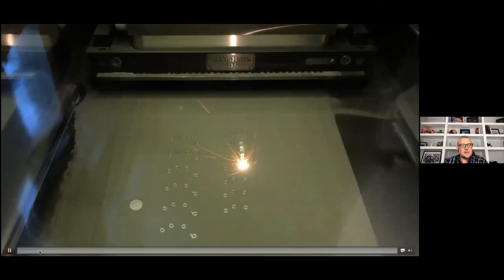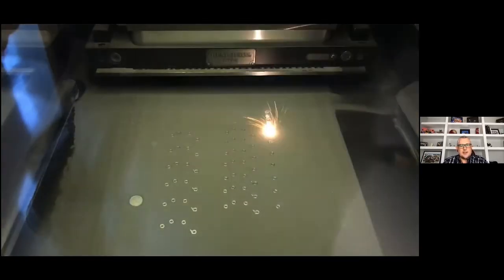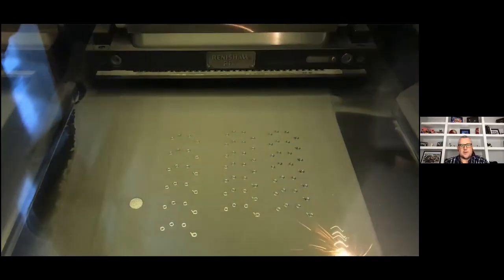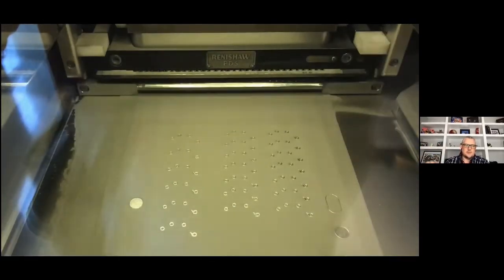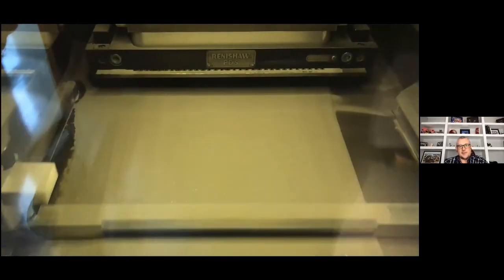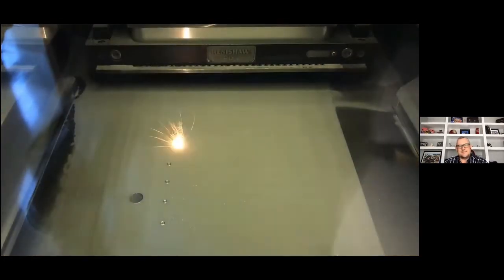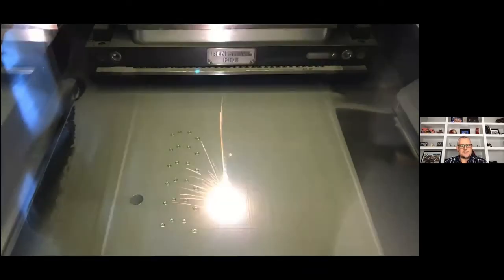If you haven't seen what it looks like, I'll walk you through what it looks like, okay? So we have our powder bed, we have the laser doing its job, and those specific areas are where the abutments will be. And once the laser runs through, we can see we put down a little layer of powder again, and we start the process all over again. And something like this would probably take for the build 10, 12, 14 hours, okay? And then we get our final product.